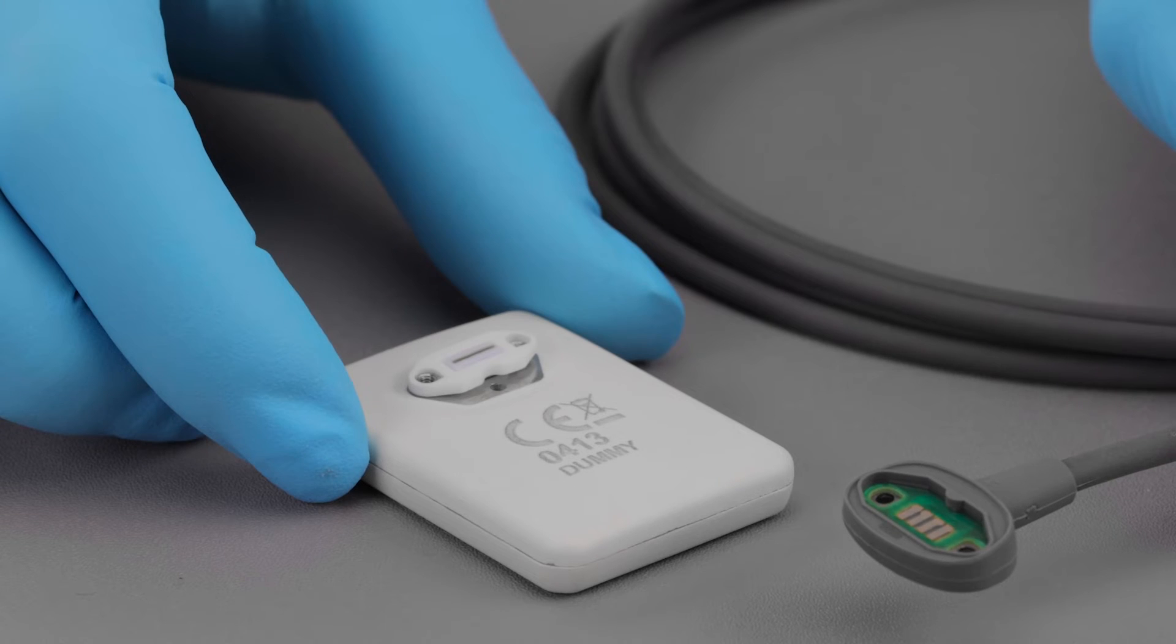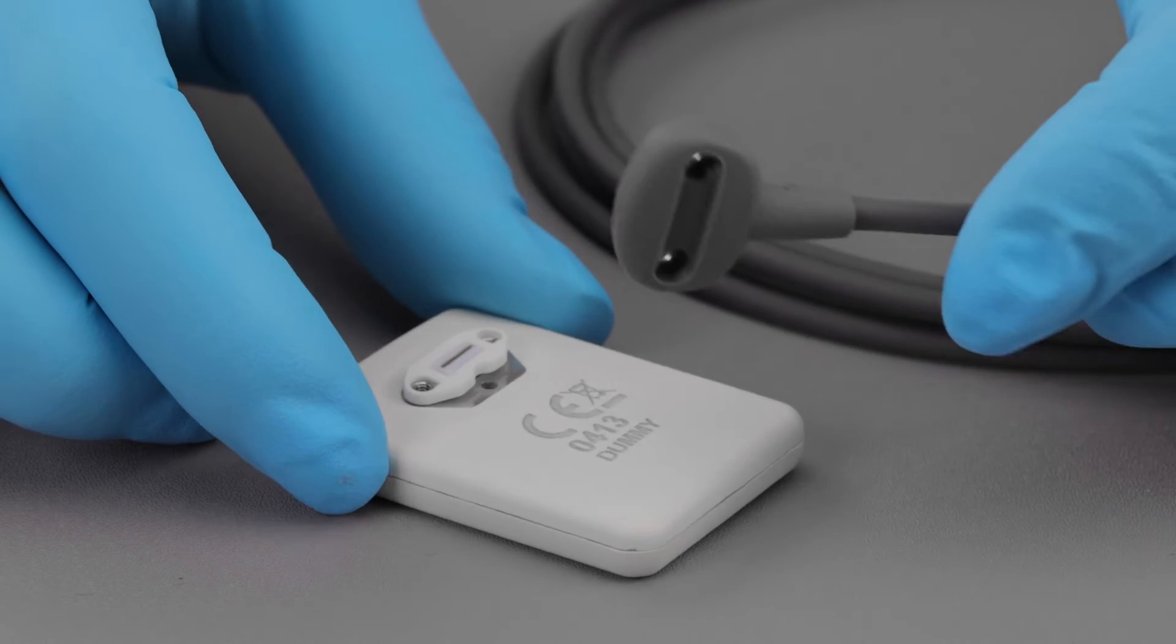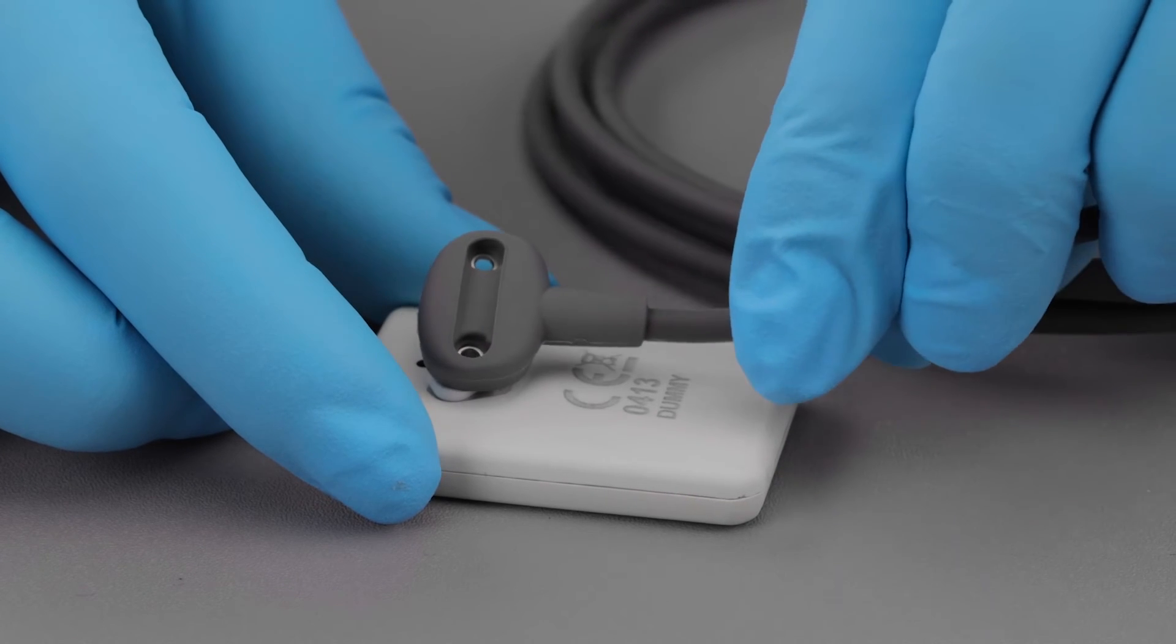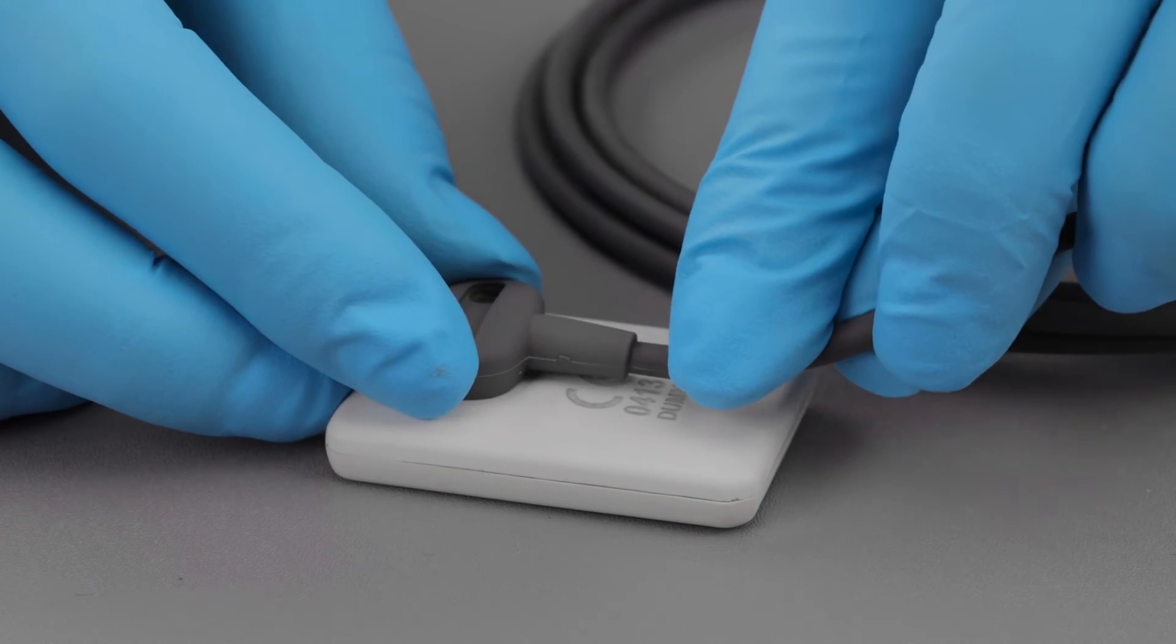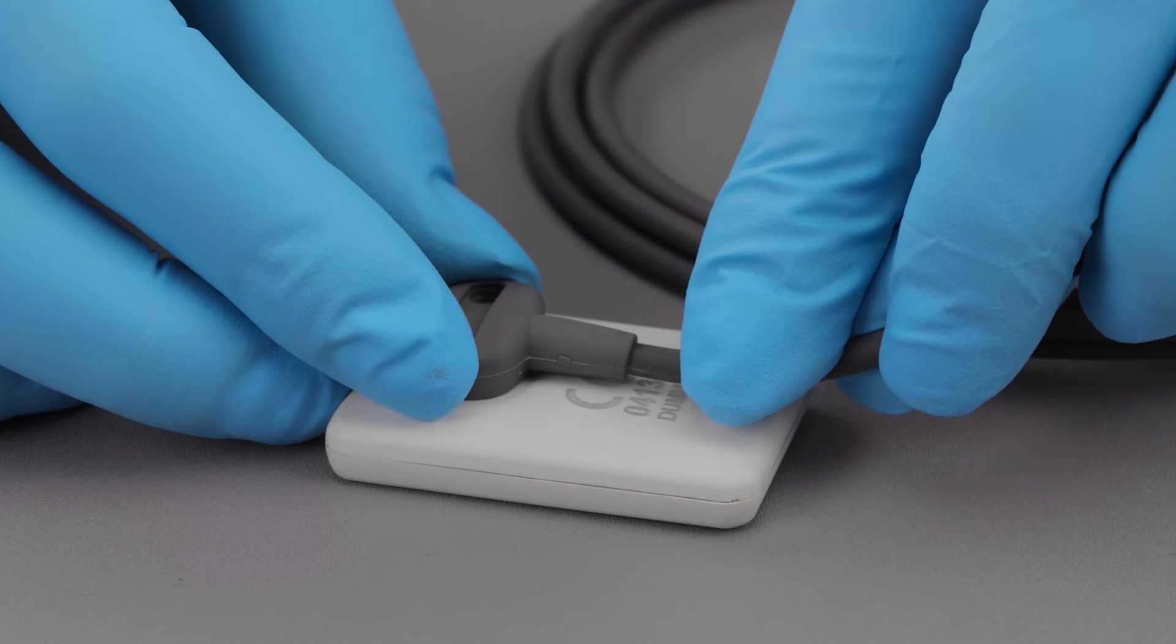Now you're ready to attach the new cable. Remove your new cable from the kit and align the cable to the sensor so that the gold sensor key feature connects to the corresponding green and gold key in the cable.